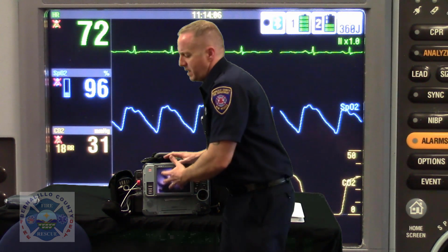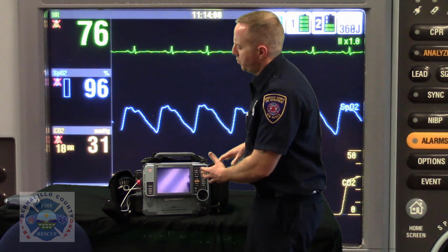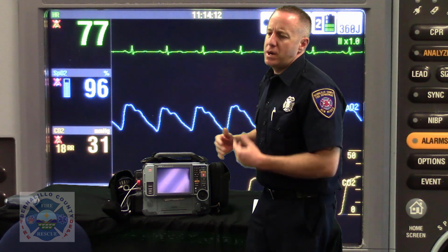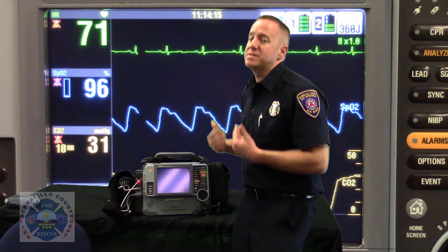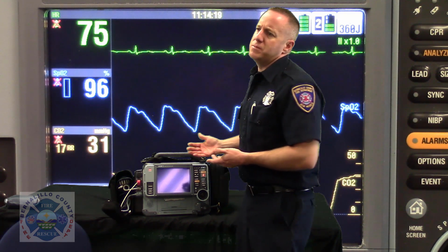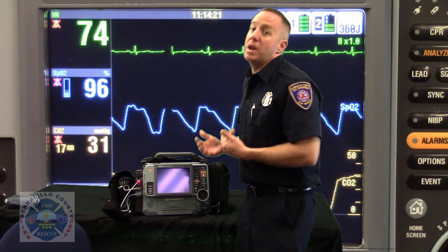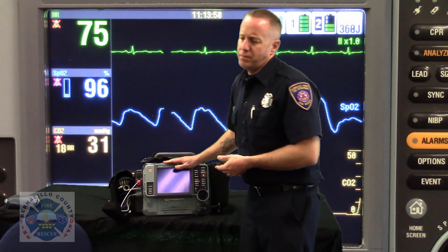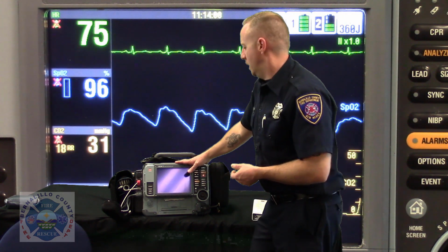So these design features that were incorporated into which side of the monitor we put this stuff on, LifePack thought about that. They wanted the whole patient interaction to be seamless from start to finish. They wanted to work with us. Those are one of the items that we say are the obvious but not so obvious when they roll out a new device. You may or may not have heard this before today.